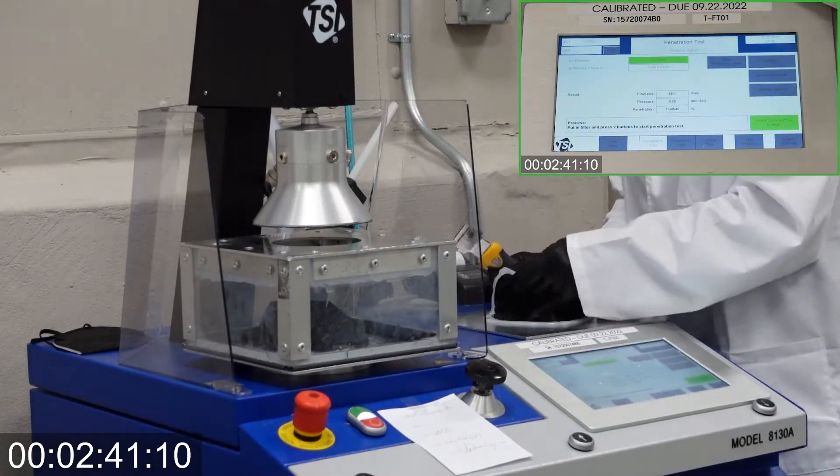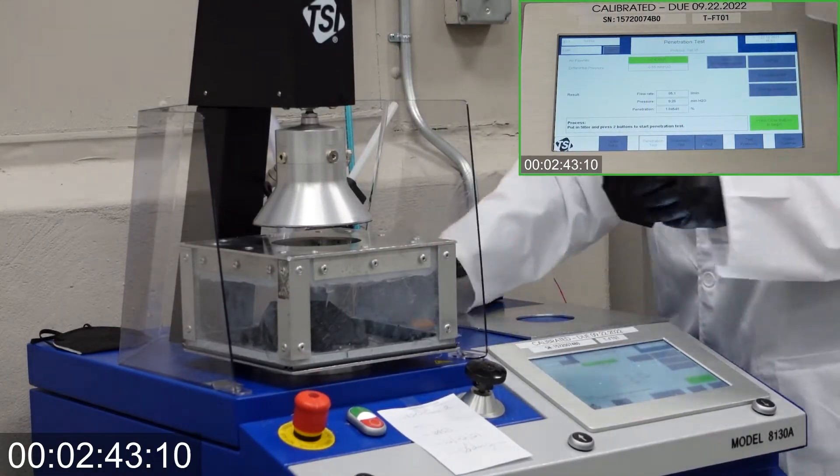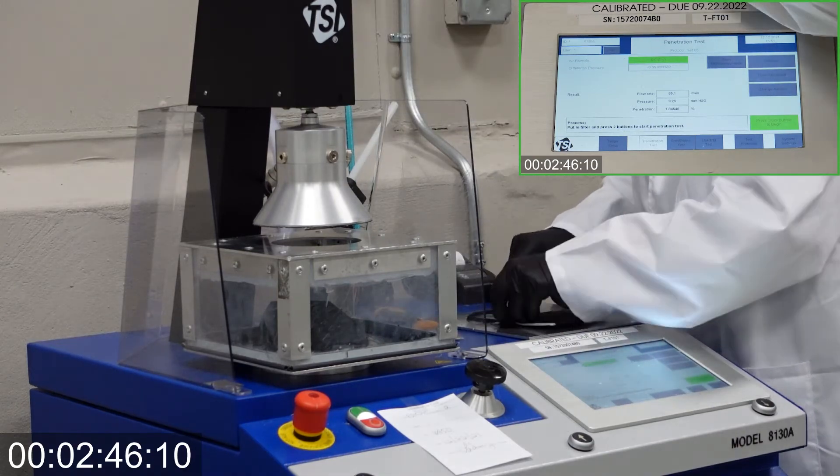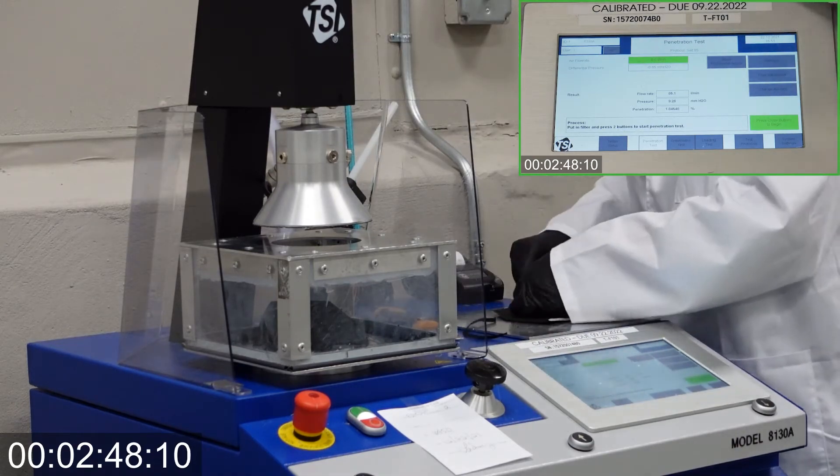We utilize the same quality control procedures to produce our KN95 masks in the same facility in Houston, Texas.